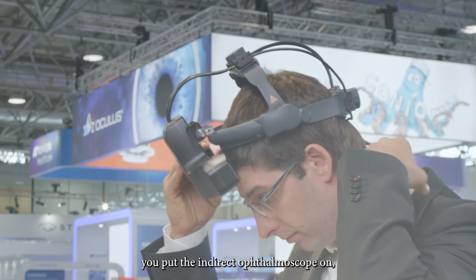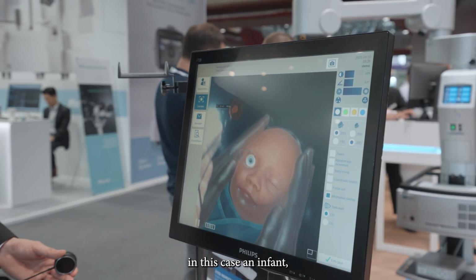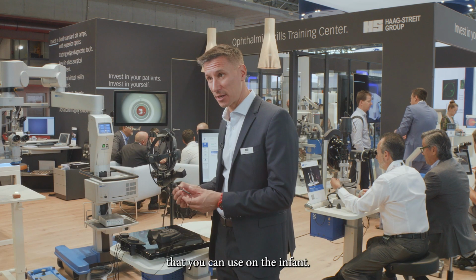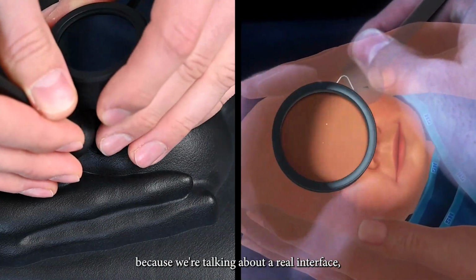put the indirect ophthalmoscope on, you will see a virtual patient, in this case an infant, but you will also see your own hands interacting with the interfaces. You have an instrument that you can use on the infant. You also have haptic feedback here because we're talking about a real interface.